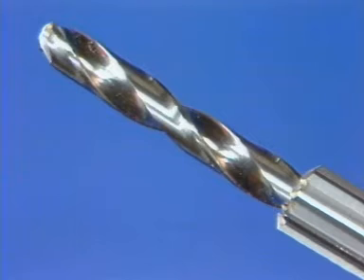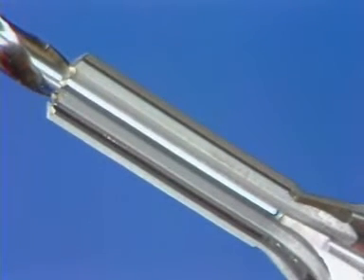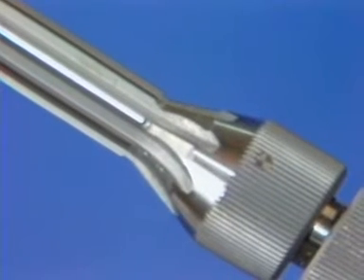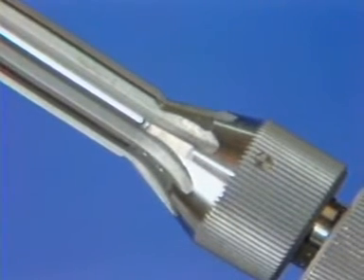Here is the triple reamer. The front part drills the hole for the lag screw. The middle portion drills a larger diameter hole for the barrel of the plate. And the back part countersinks the cortex for the connection between the plate and barrel.